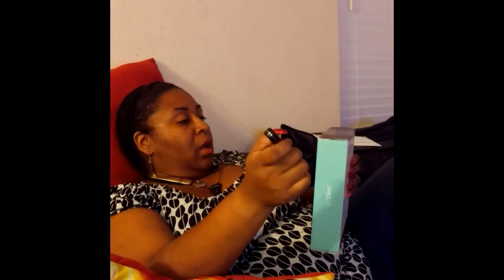The difference with Invisalign and this: Invisalign is you spend a majority of the time in the doctor's office and the doctor does all of it — the molding of your teeth, the pictures, so on and so forth. The reason why this is so cheap is because a majority of it is done at home. You do everything yourself. I had to actually take pictures of my own teeth, send them in, and get evaluated. Everything turned out good, so they sent me my kit.